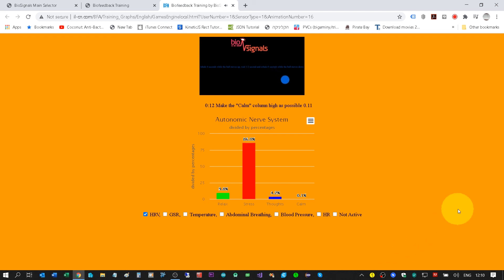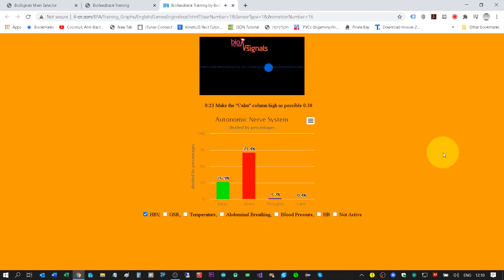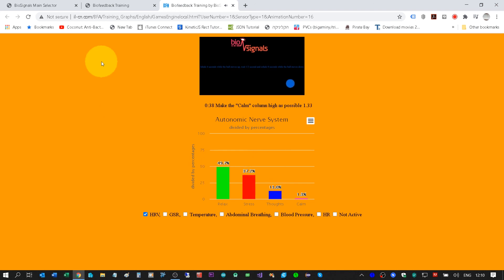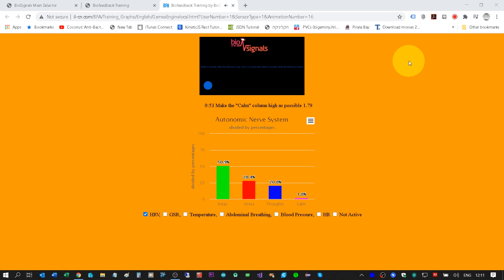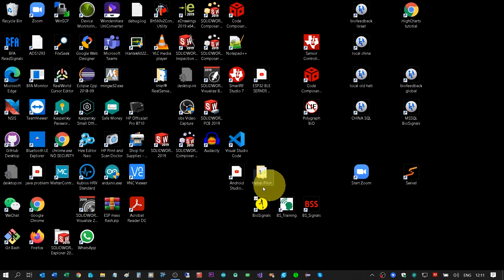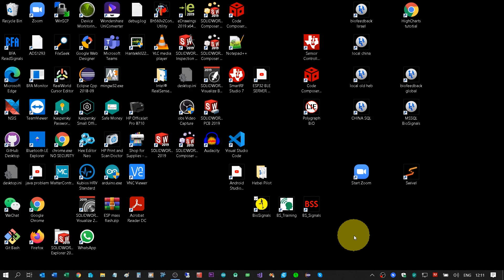When I click Login, it will start to transmit data to the cloud, blinking between green and blue circle, which means transmission is happening. I can go to the same button, click on the English version, and choose the correct training. The only difference with this application is that it also transmits data to the cloud. This is a very easy way to save all information in the cloud while helping your customer. The software will stop automatically after 10 minutes.